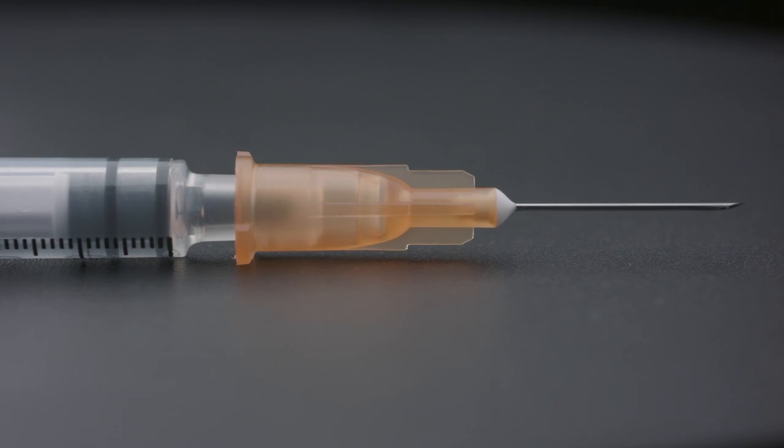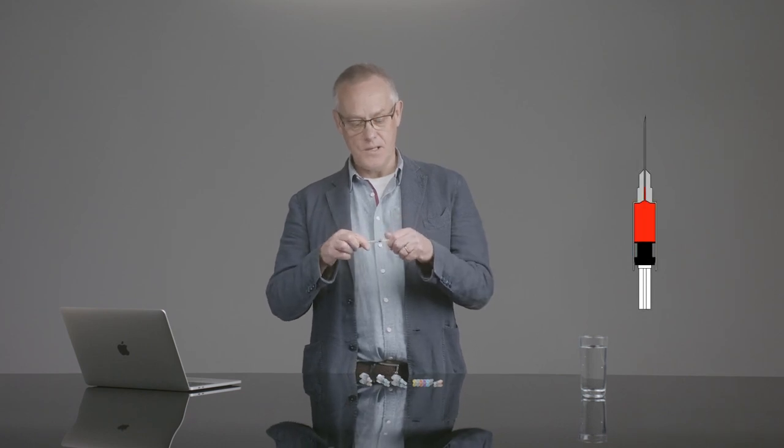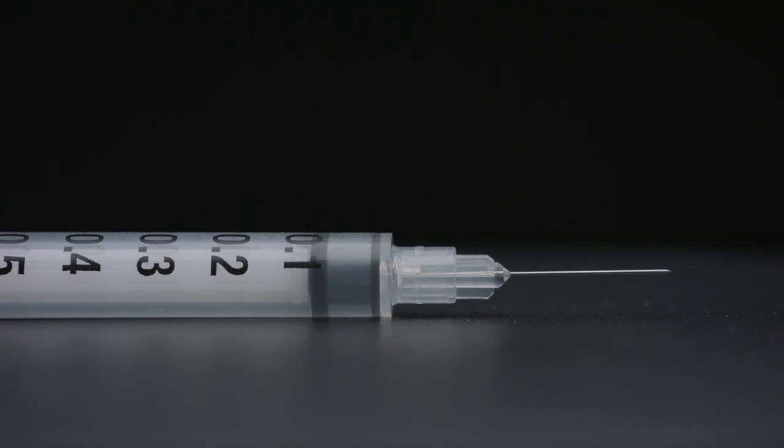In order to reduce harm we want to reduce the dead space as much as possible. In order of risk, fixed one mil syringes are low dead space syringes with around three microlitres of dead space.